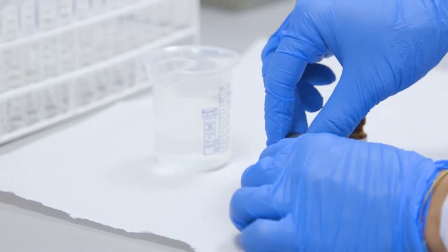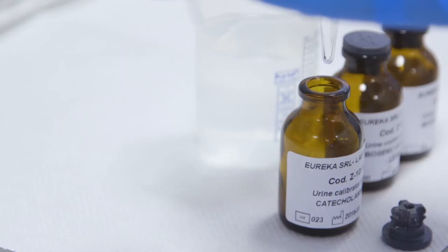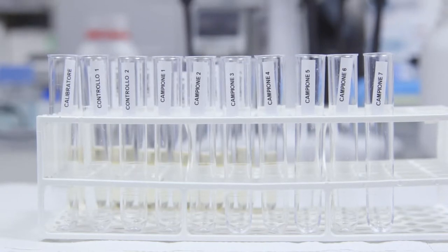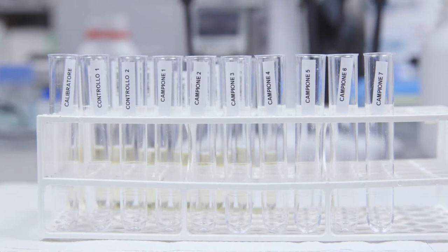Let's move on to the workbench and reconstitute the calibrator and the lyophilized controls. We prepare as many 10 milliliter plastic tubes as samples, the calibration standard, and the controls.